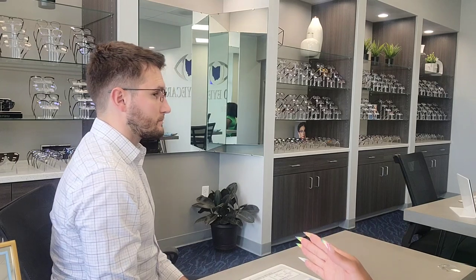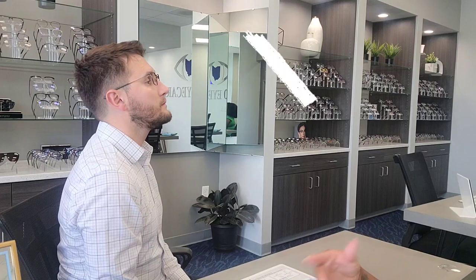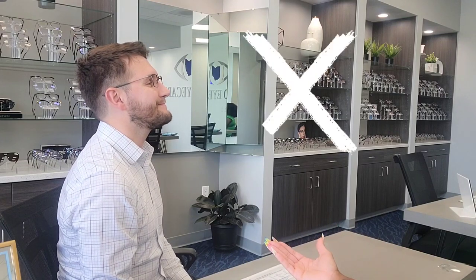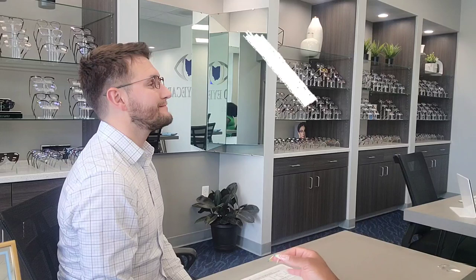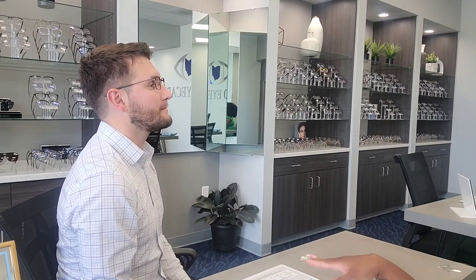One last tip with computer is to tip your monitor forward from the bottom — that just kind of brings it up for you a little bit more. So I do want to share a look-don't. If you can just give them your profile and show them office neck — if you are at work like this, they call it office neck. It's very uncomfortable, and that means that you either do not have a properly fitting progressive lens, or you may just need to make some adjustments to your monitor and your seat.